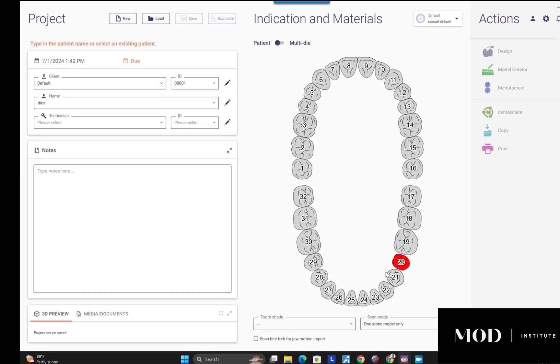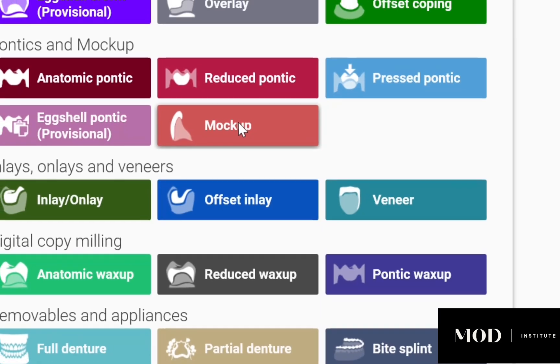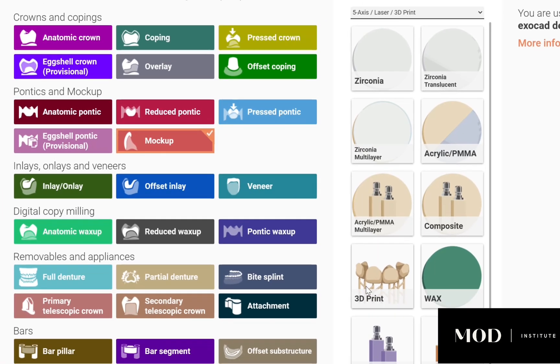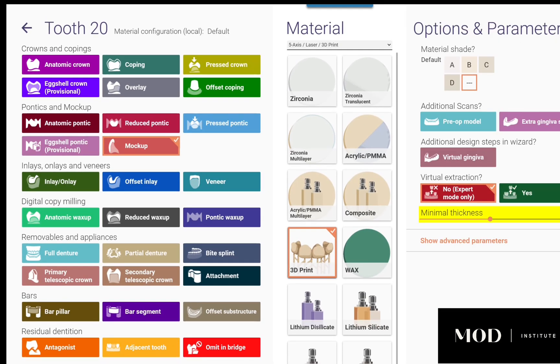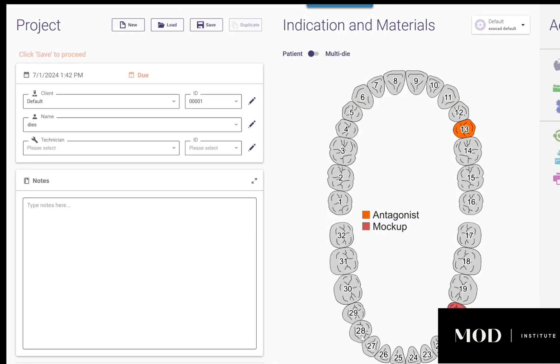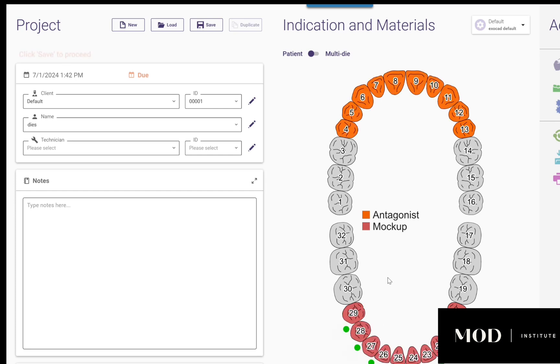The first thing you're going to want to do is open the case as a mock-up — just call it '3D print' — and make the arch that you want the detachable dies as the antagonist. The opposing arch you'll make as a mock-up, remove the connectors, and start the case.